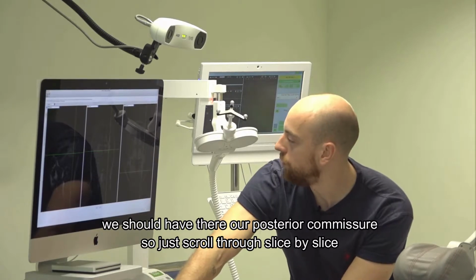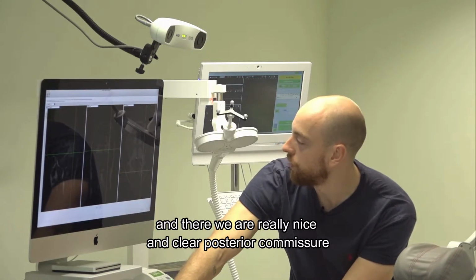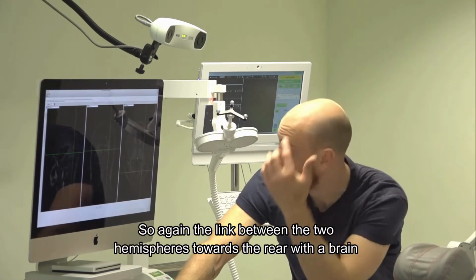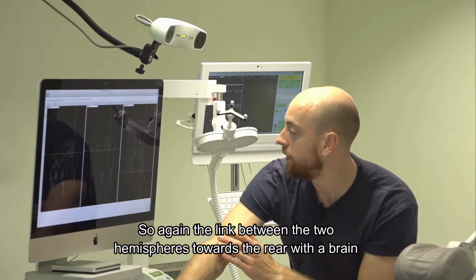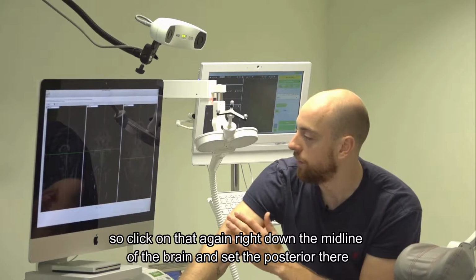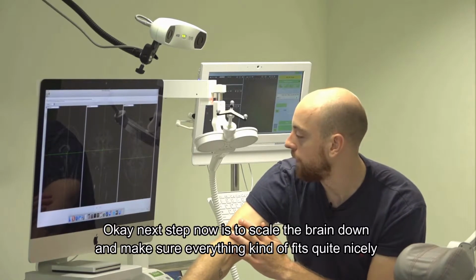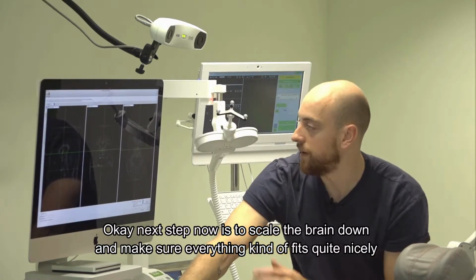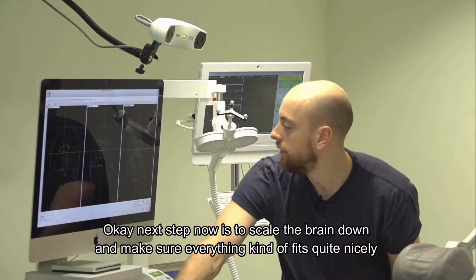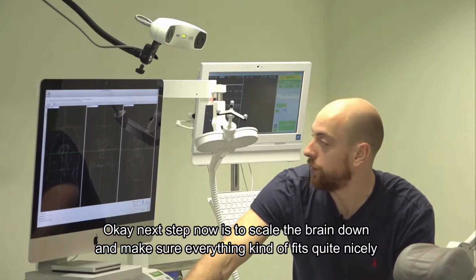Just scroll through slice by slice. And there we are, really nice and clear, the posterior commissure. Again, the link between the two hemispheres towards the rear of the brain. Click on there, again right down the midline of the brain, and set the posterior there. Okay. Next step is to scale the brain down and make sure everything fits quite nicely.